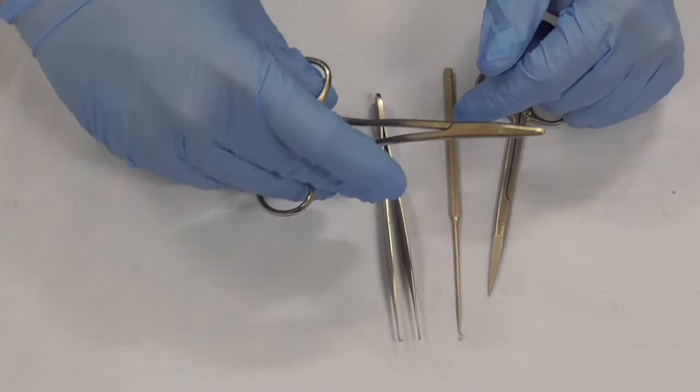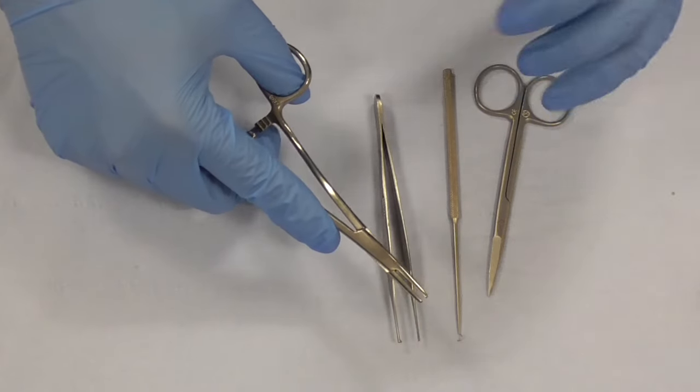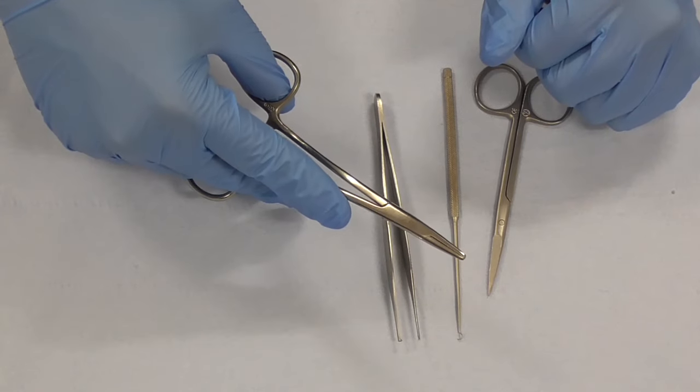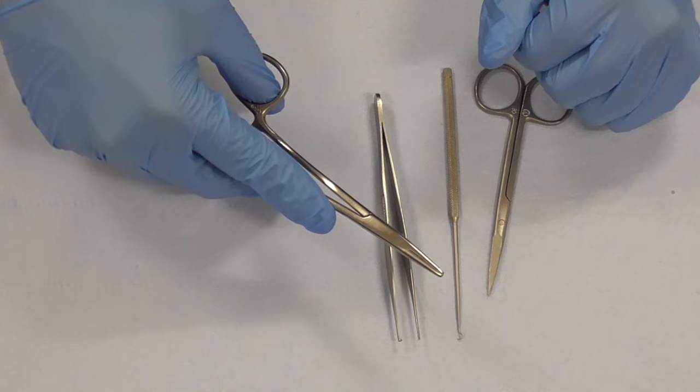Once you've got that you pick up your needle, never handle it with your fingers, and then you click it sharp and it should stay wherever you put it.